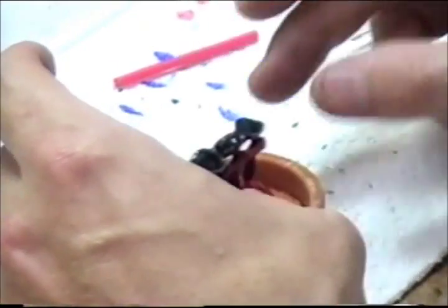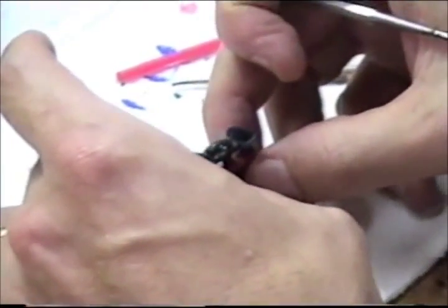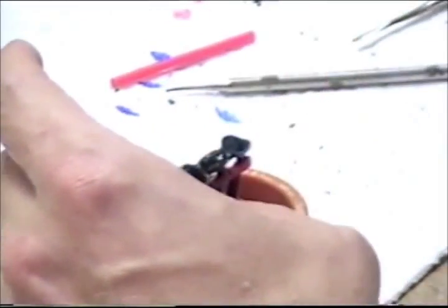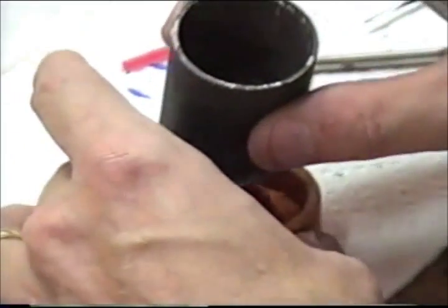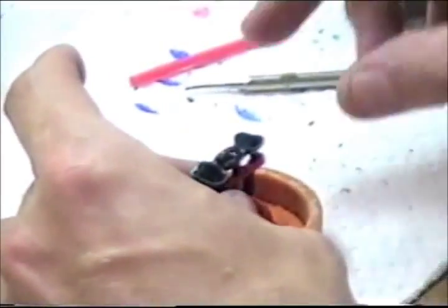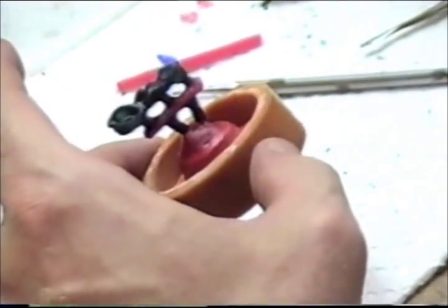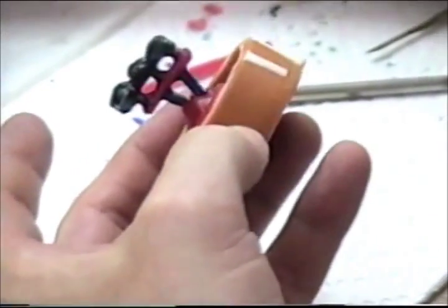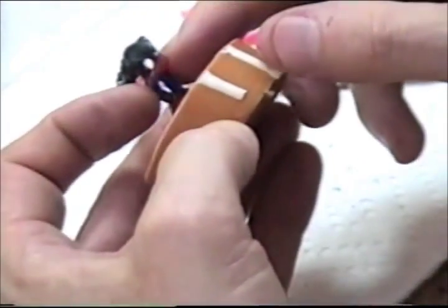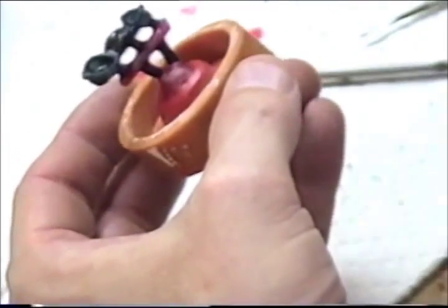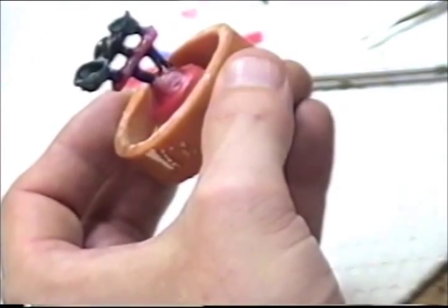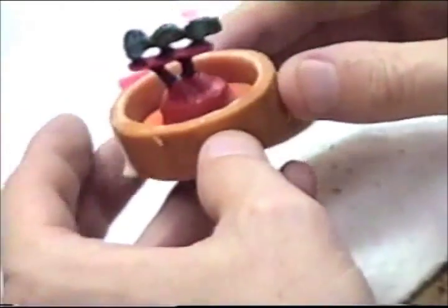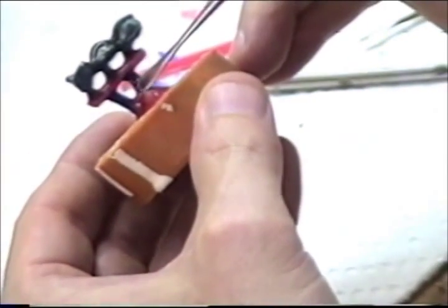Place that now on my former. Position it so that the ring will go on. And I will go ahead and finish putting the sprues, attaching them to my sprue former here.